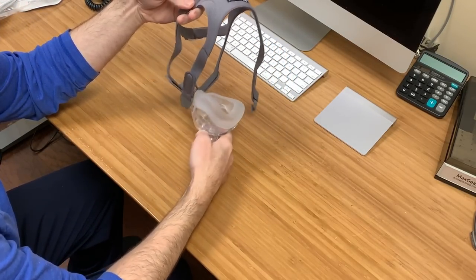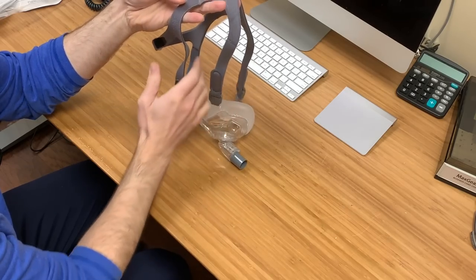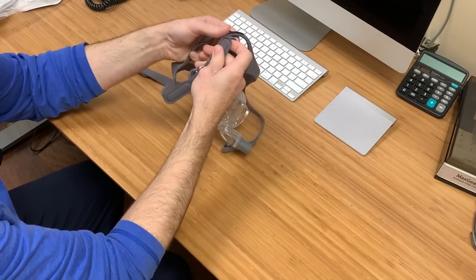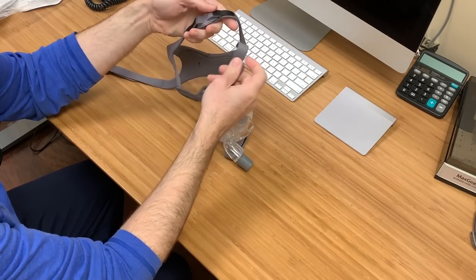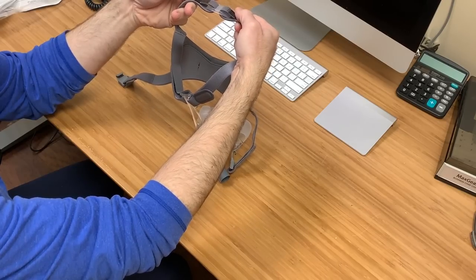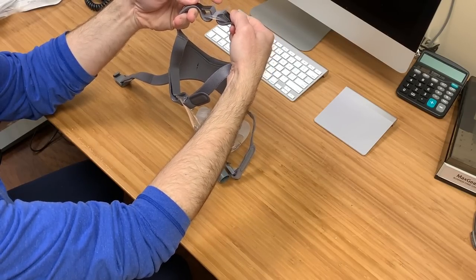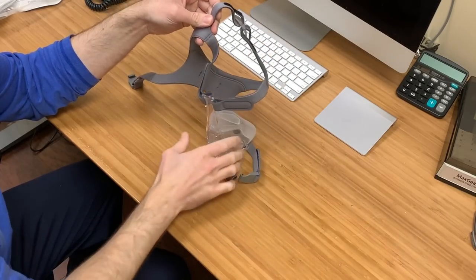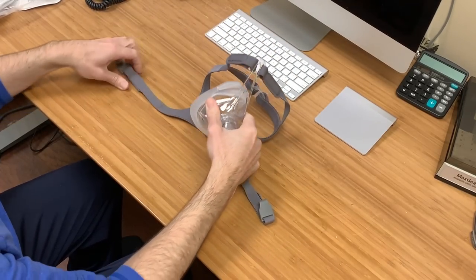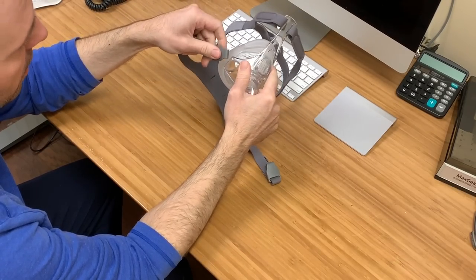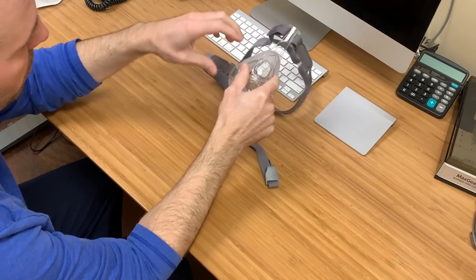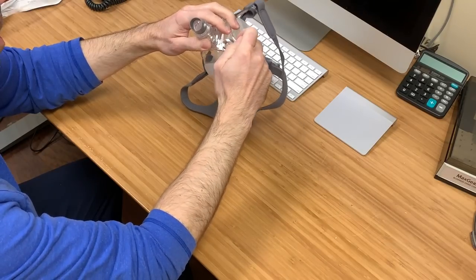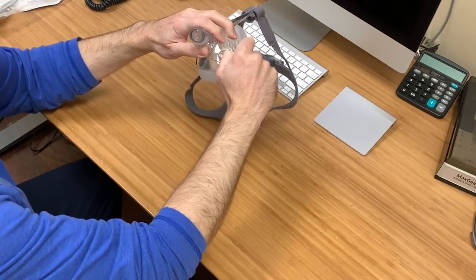And not only with the headgear, not only do you get the four points of Velcro, but you get the top of the head for adjustment. On the headgear, you get these clips. They come off easily.